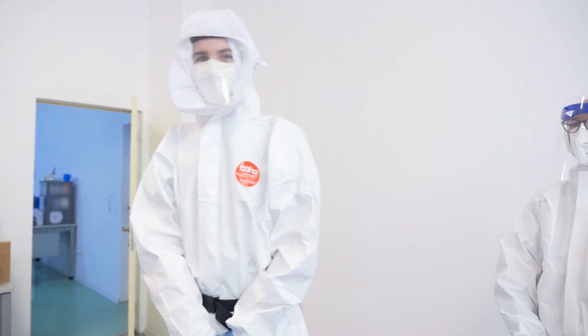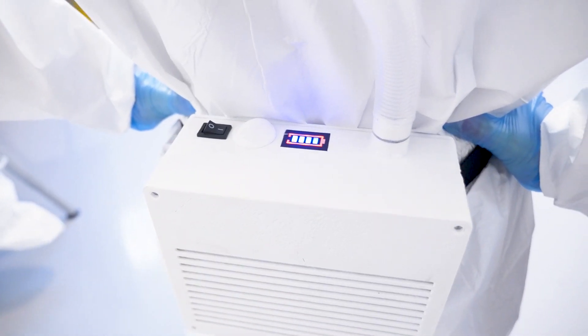Power on the blower and adjust the flow of air to your needs. You are now good to go.